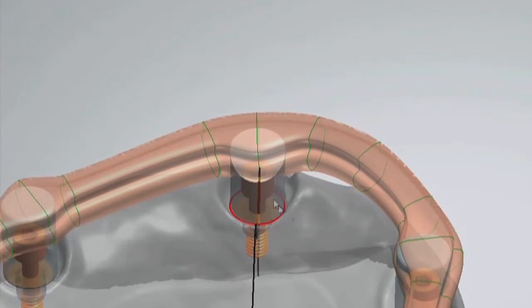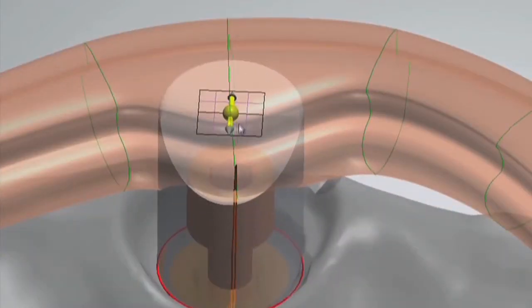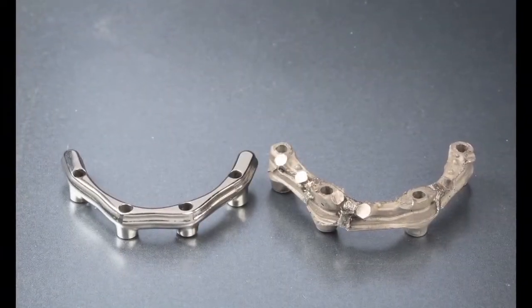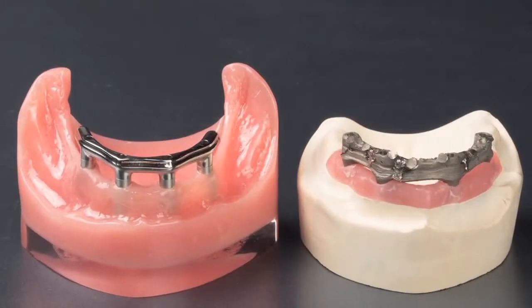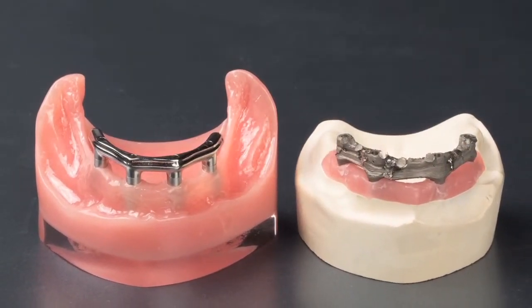Fortunately, advances in CAD-CAM technology have brought about production techniques that are faster and more precise, increasing the efficiency with which implant bars are fabricated and greatly improving predictability upon seating.